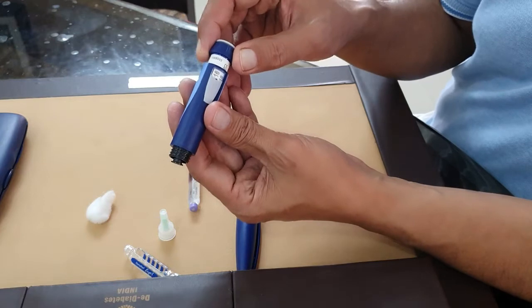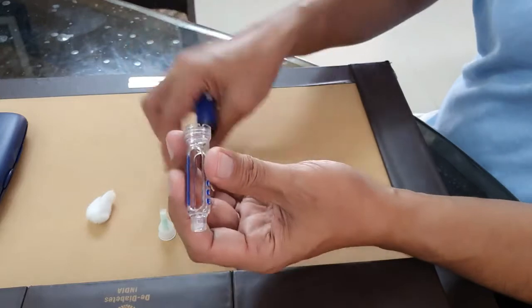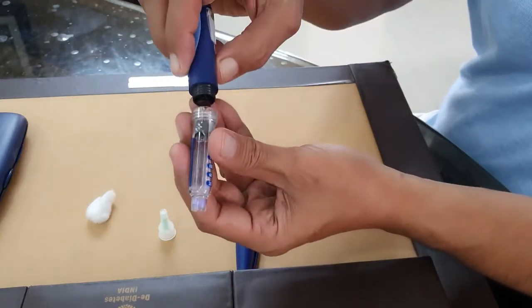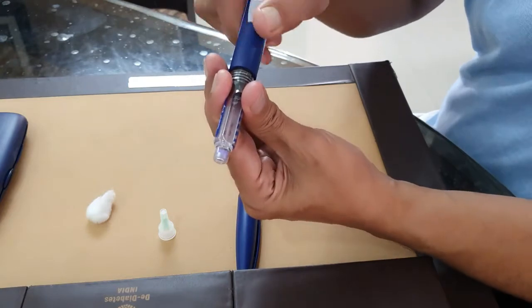Once you take it like that, take the cartridge box, put the cartridge like this, and slowly tighten it. You're going to tighten it properly - not too tight or loose.